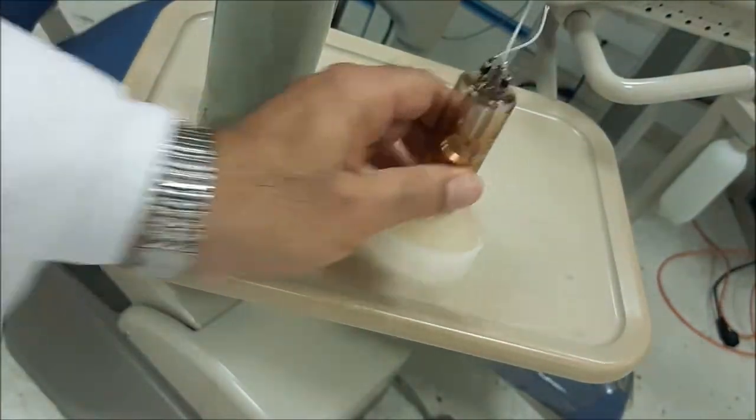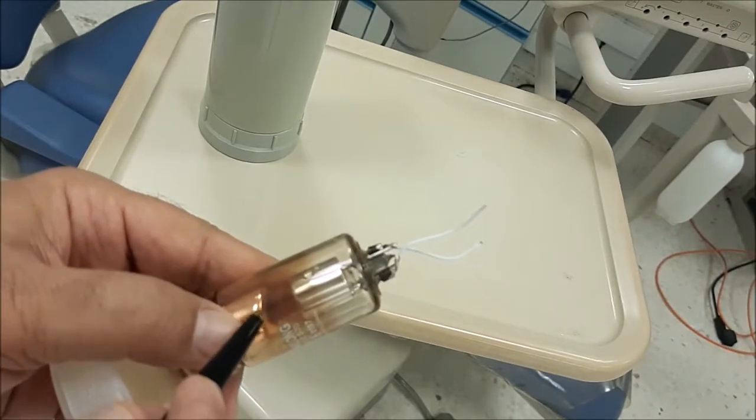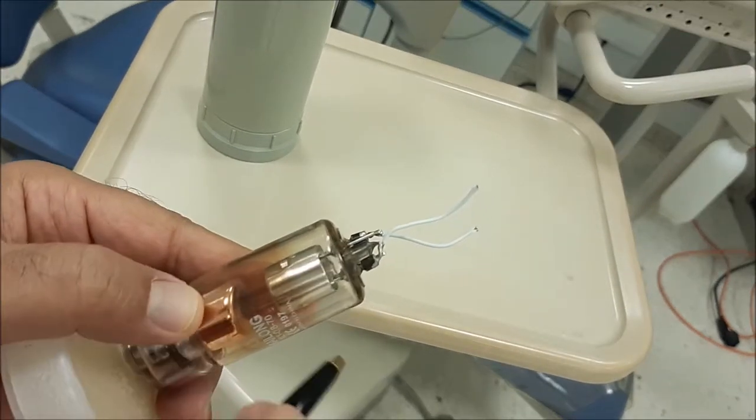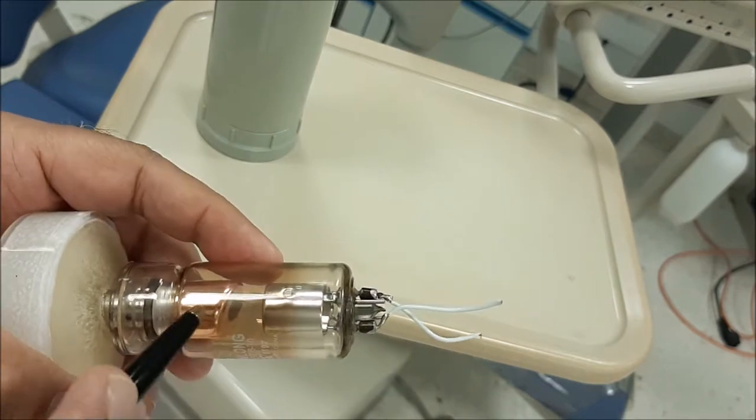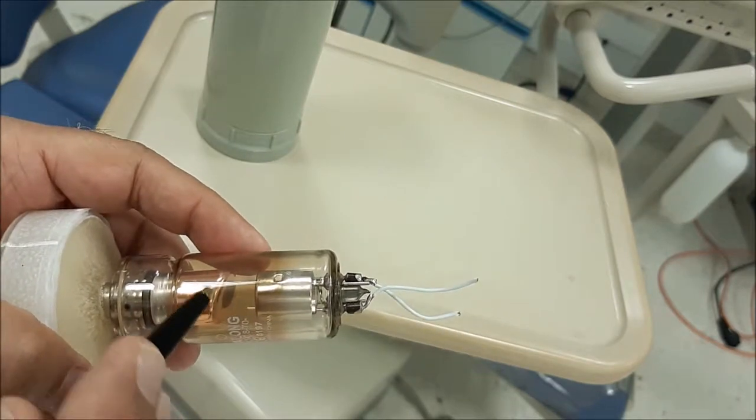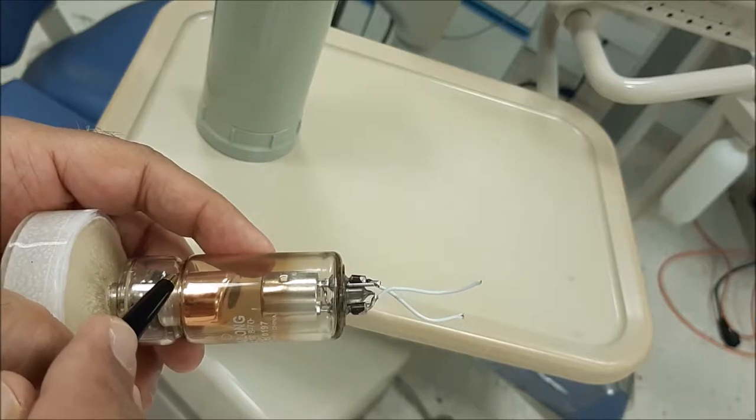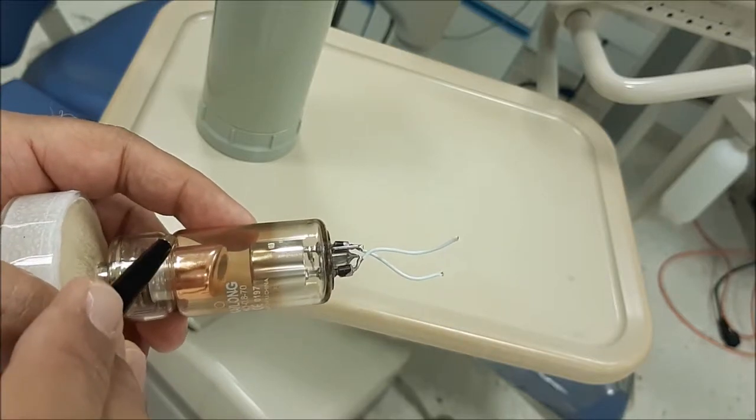Now, the x-ray which is generated in this area is not homogenous. It means that the energies of the x-rays that are emitted over here are completely heterogeneous.